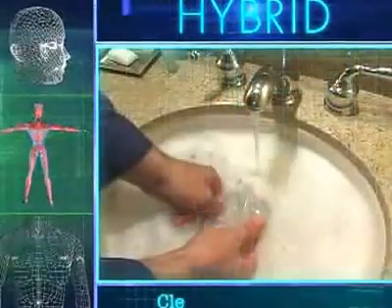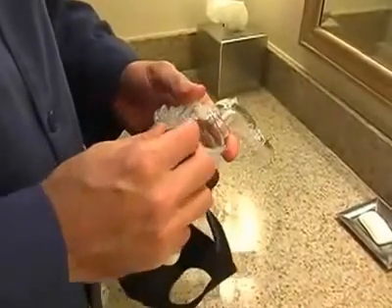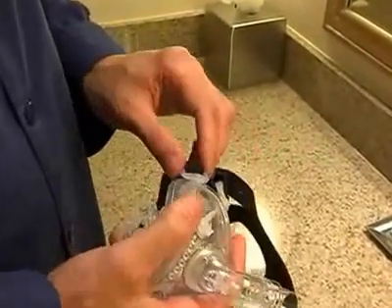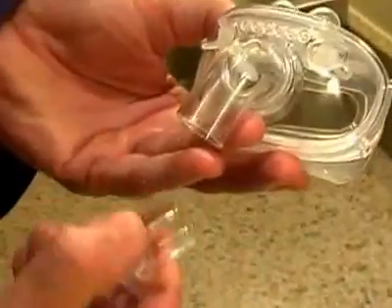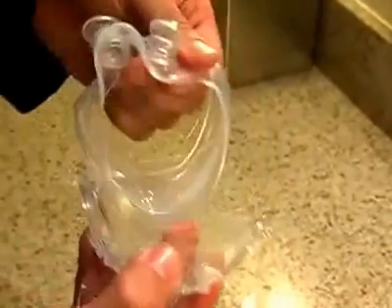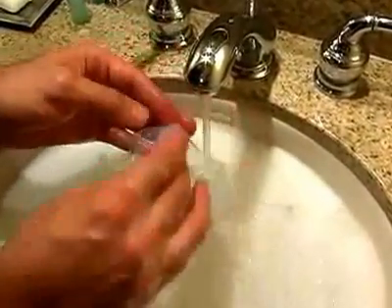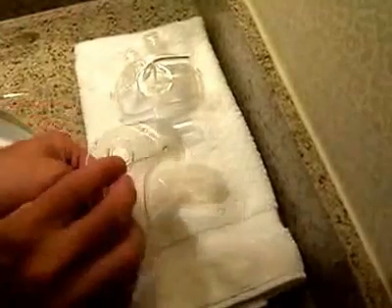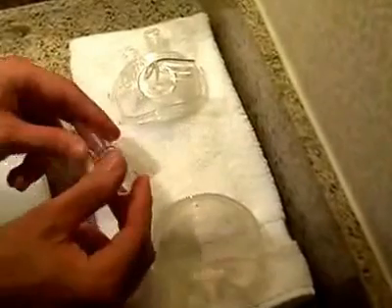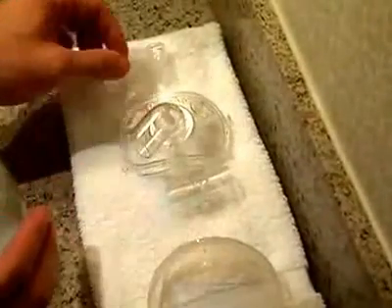The Hybrid Universal Interface is intended for single patient use. To clean your Hybrid, unsnap the headgear from the Hybrid. The headgear, with its buckles attached, should be cleaned separately with warm water and soap. Disassemble the swivel coupling, the oral cushion, and the nasal pillows from the mask. Wash all of these components in warm water and soap and rinse thoroughly. Shake off excess water and air dry out of direct sunlight. Carefully inspect components after each washing for evidence of wear or damage. Discoloration after several washings is normal and is not considered a sign of wear.